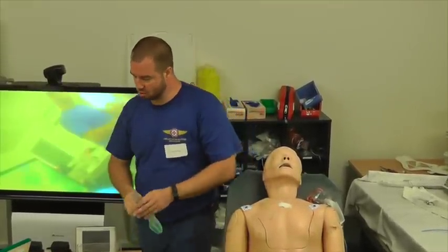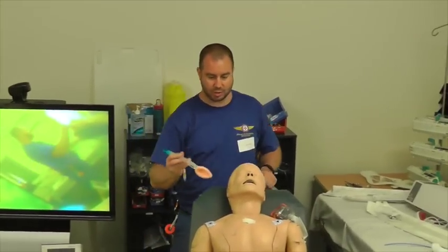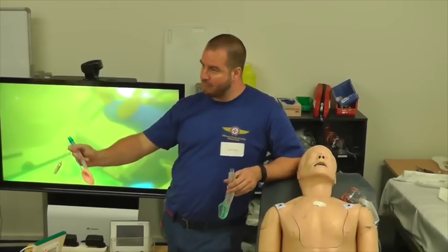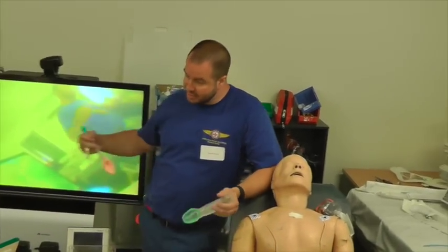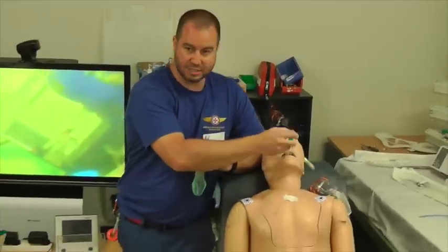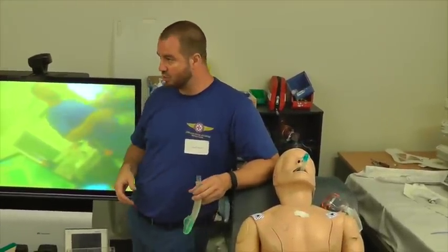So they're good. But whenever we've found problems with our airway registry with doing the advanced airway stuff, it's because people have MacGyvered up the stuff instead of using the kit we provide in the situation where they've already got a different type of laryngeal mask in. And then they try and introduce a scope and a tube through that.